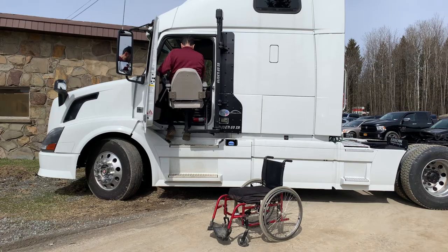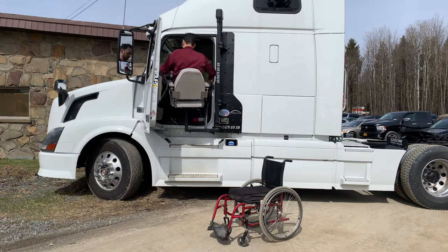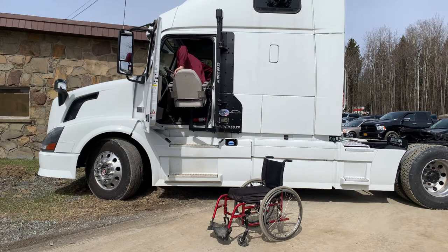When you get to where you want to go, probably raise up a little bit here. You hear the ratcheting sound — you've hit the top — get the legs in. Transfer into the seat. You've got an adjustable seat here so you can move it all kinds of different places, whatever is convenient for you.